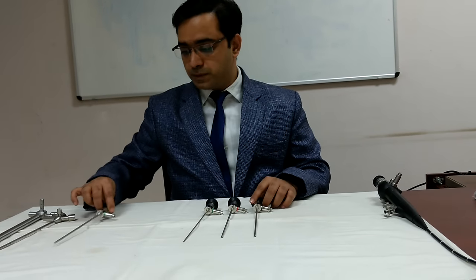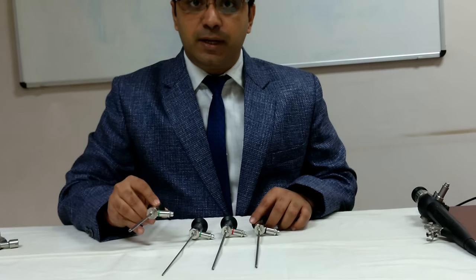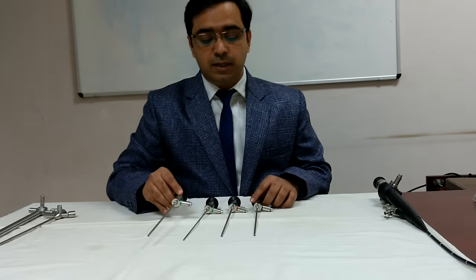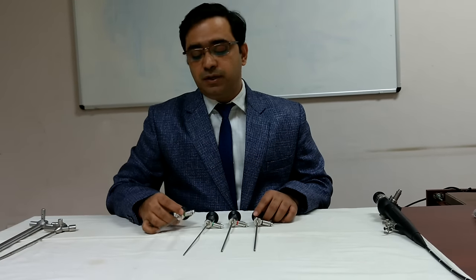So these are nasal endoscopes. Most commonly used endoscope is 0 degree. This is used both in diagnostic as well as therapeutic purposes. All the surgeries we usually do with 0 degree.